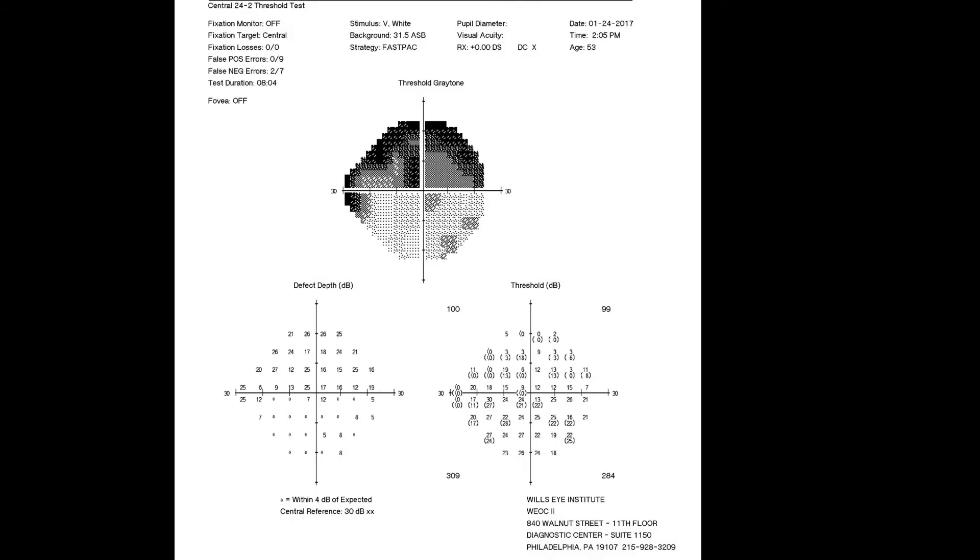The last one shows a patient who had a lot of fixation losses and also too many blinks. This is a patient with the fixation monitor turned off. As you can see, we don't have any fixation losses because it has been turned off.